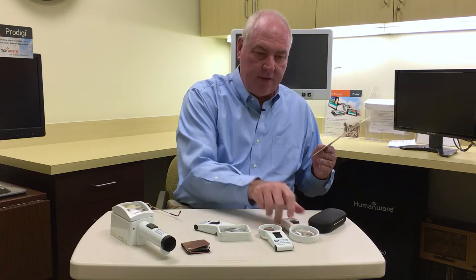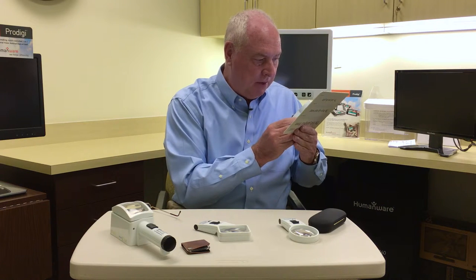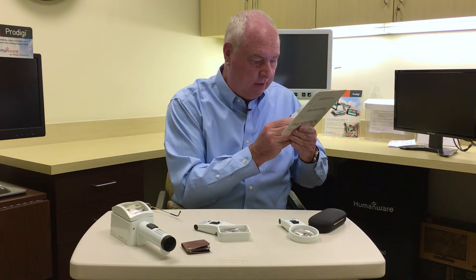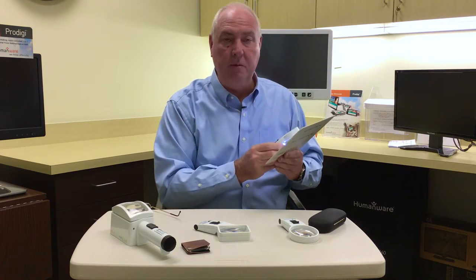Many of us who have been using magnifiers to read for a long time know that trick: the closer the front of the lens is to your eye, the bigger the area you see underneath the lens. Even stronger lenses get smaller, which is the big adjustment or frustration. This lens would be six times magnification — now I can only see about one and a half words — so again it forces you to bring it right close to your eye to see more at one time.